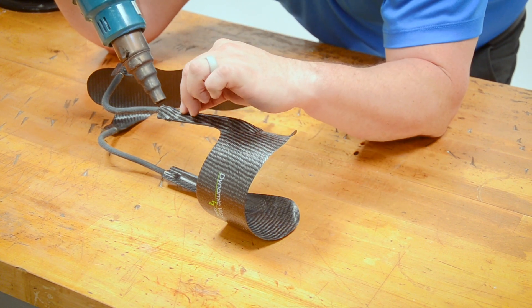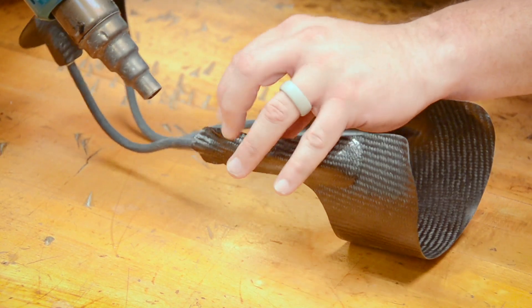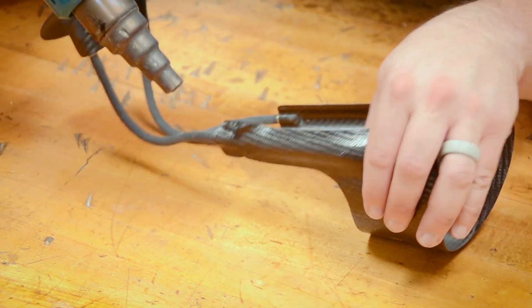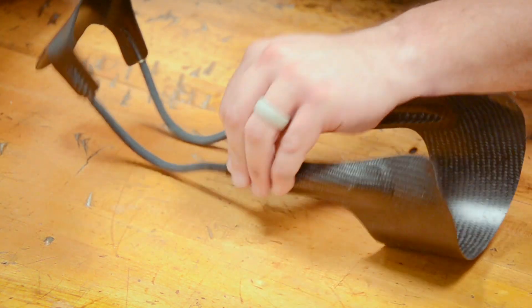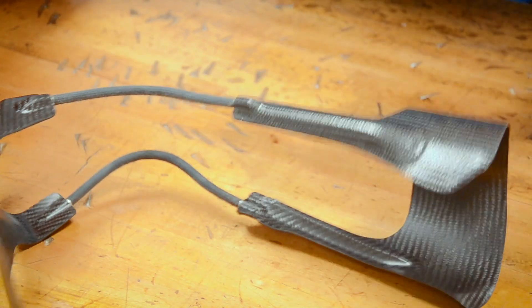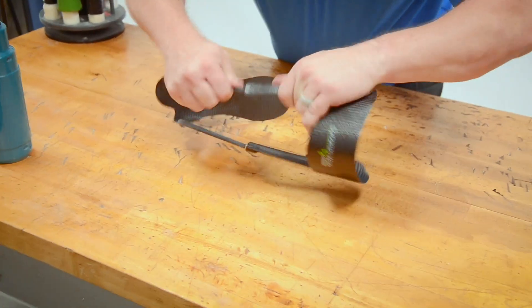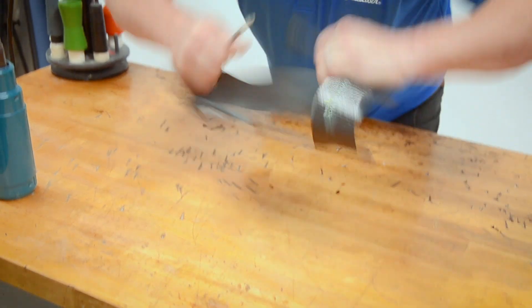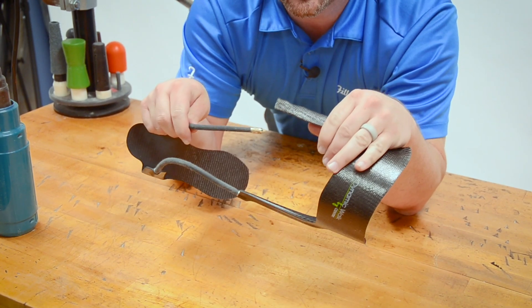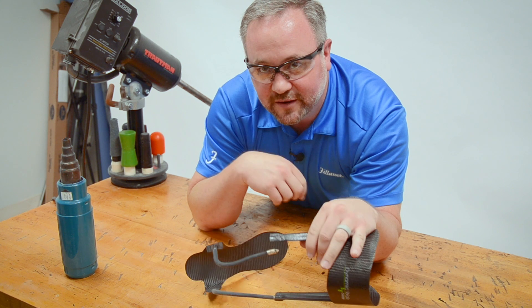It's starting to flare on me — see, that's what the delamination looks like. That's what you don't want to happen. That means I went too far. The nice thing with this material is I can squeeze that back together and remake it. But if I've overheated it, that rod's going to come right out. So don't overheat it right there, because that'll give you a problem.